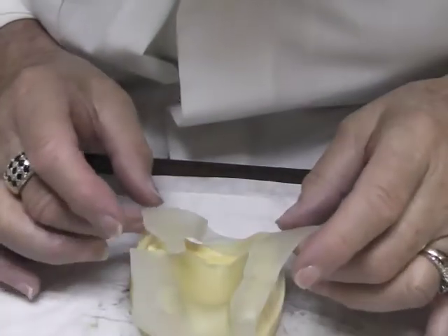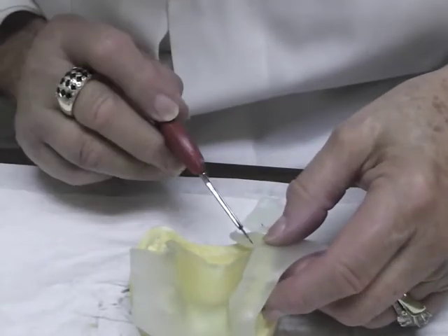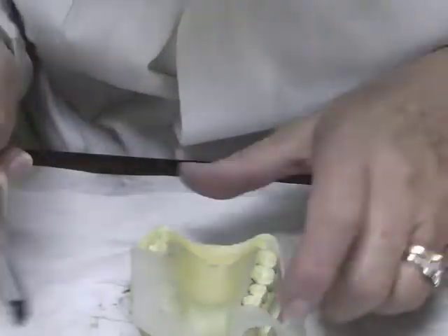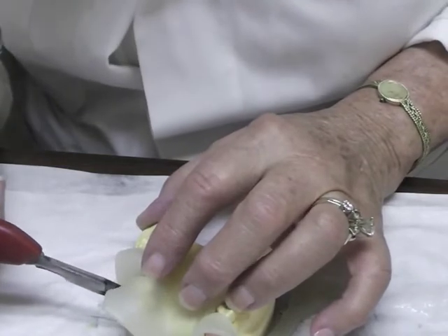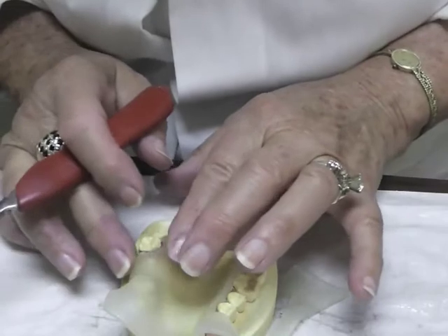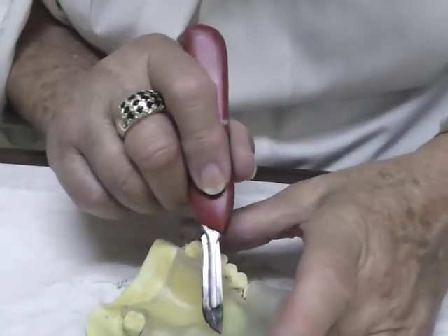Now we are adding this record-base material — this triad. I'm just cutting some of this excess off. I'm going to come down and have a little bit of excess, but I'm coming down this area so that I can bring my triad down here. Now don't push real hard — you don't want to thin the material that much.